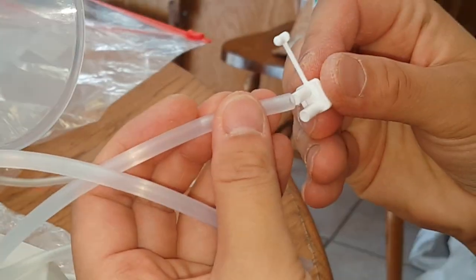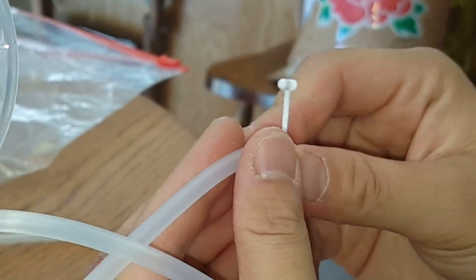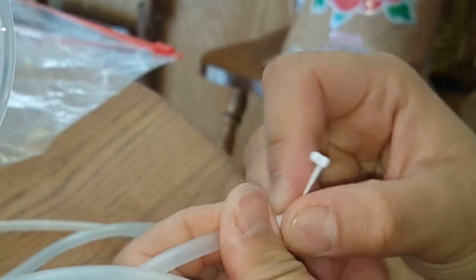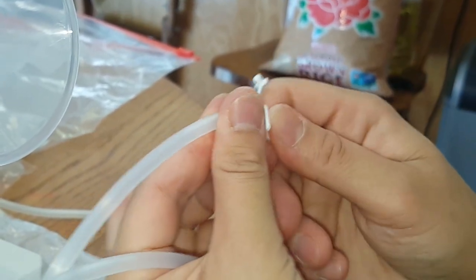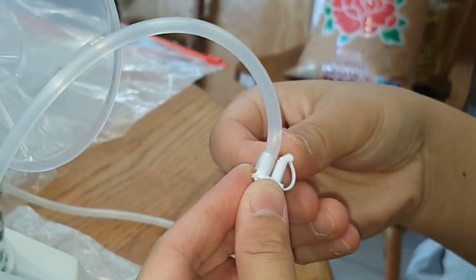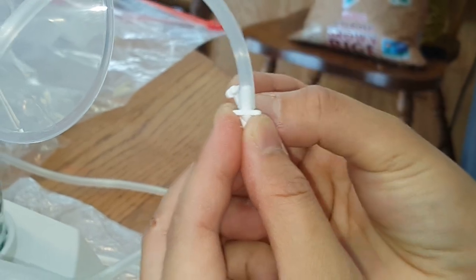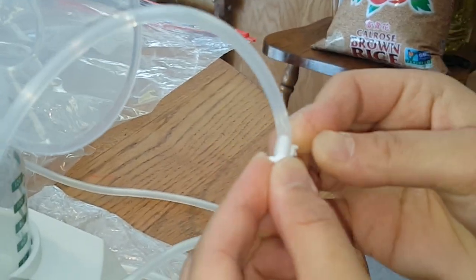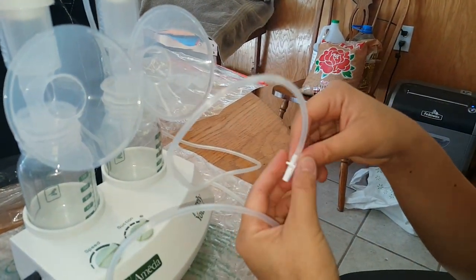So this allows you to pump one or both sides, which is really neat. If you want to pump only one side, you'll hook it up to that side and close off this little loop here. That allows you to get maximum air and pump just one side.